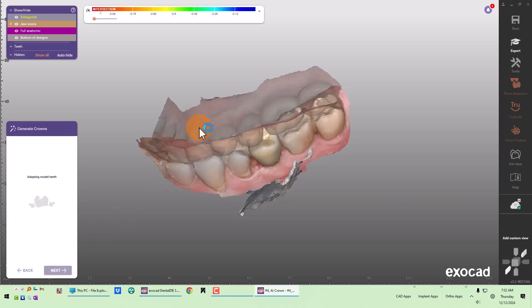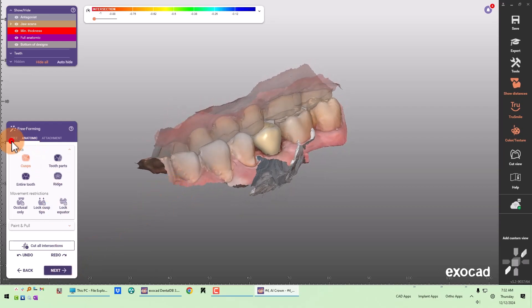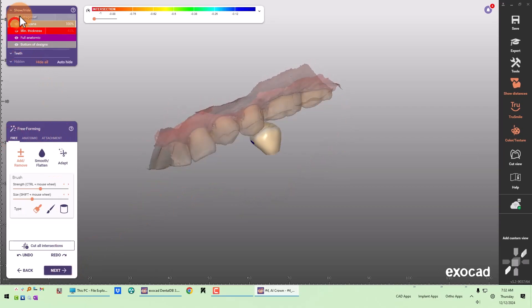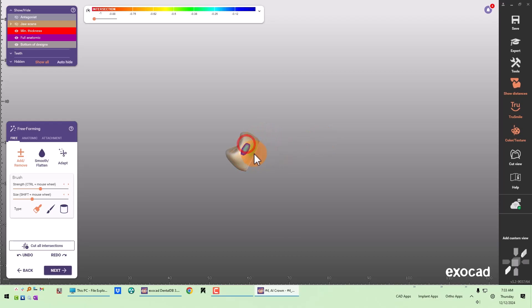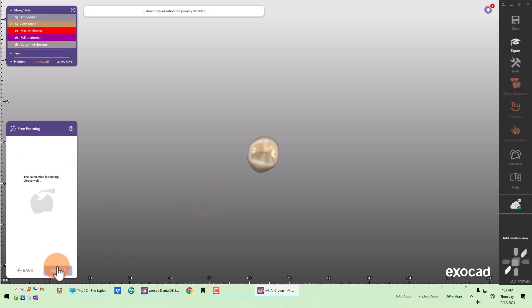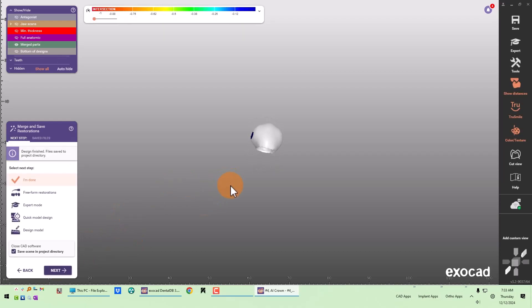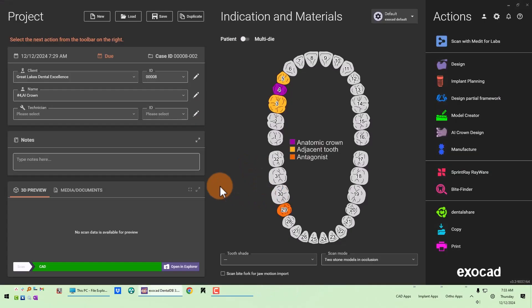My crown bottoms and my margins are all preset. I don't have to do any free-forming, but I will check the contact areas. I like to make them even broader, then I'll adapt to what my parameters are, and then I'm done. So a little over three minutes, maybe five minutes total. I hope that helps, and I hope you enjoy the new AI crown design feature.